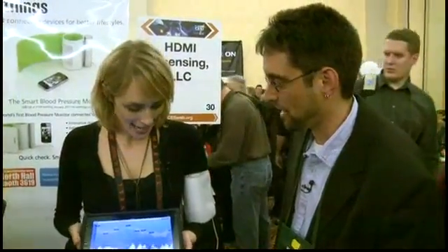How much is this going to cost to get the cuff and the software, and when will we be able to get it? The blood pressure monitor will be $129. It will be available by January and the app is free, so you just need to buy the blood pressure cuff and everything is free after that.